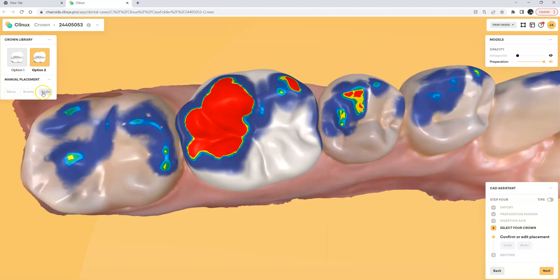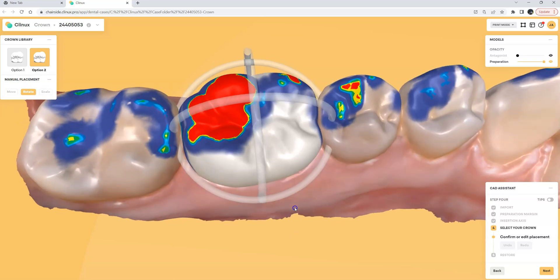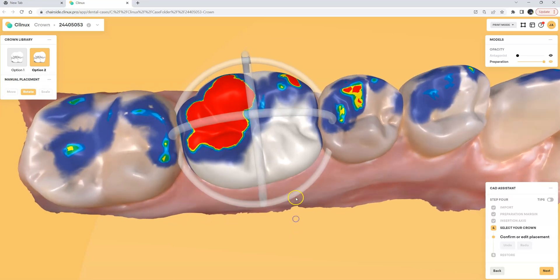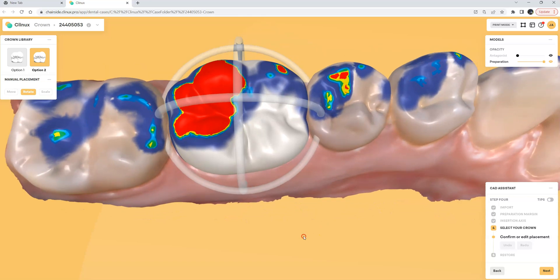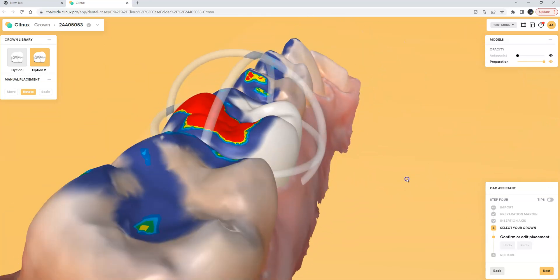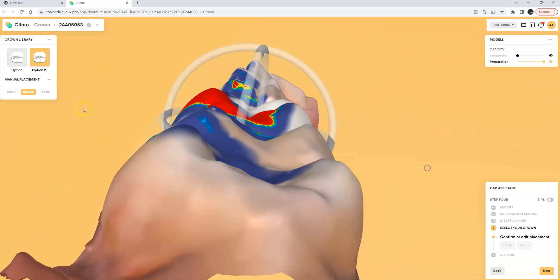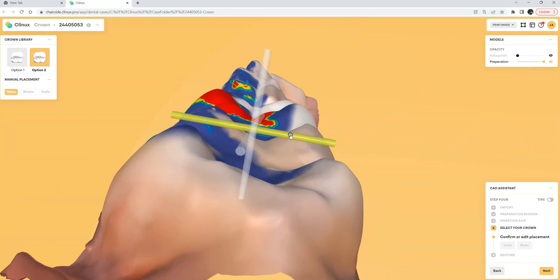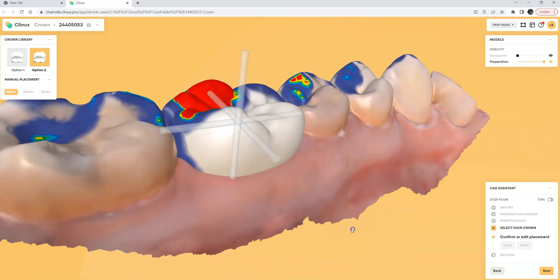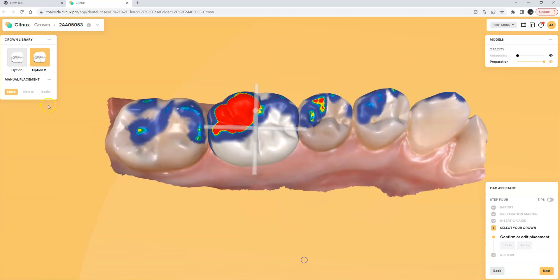I can move, rotate, or scale. Let's start with a quick rotate because the initial placement here is rotated a bit so let's go ahead and straighten that out and let's make sure that we like the way the crown is situated in the arch form. If I wanted to move it a little bit you can say hey we need to move this a bit more lingually to match up with the other teeth but overall the manual placement looks pretty good.